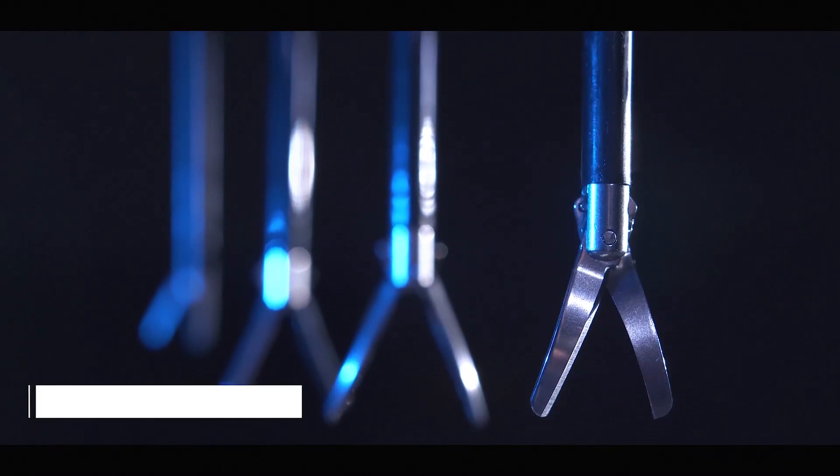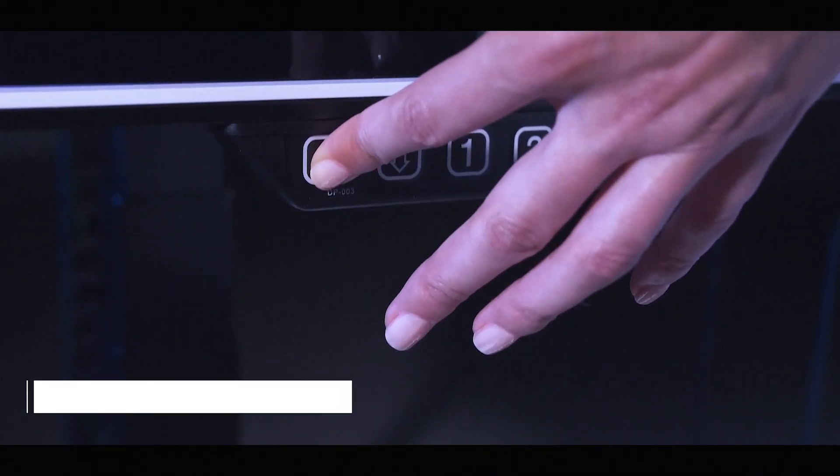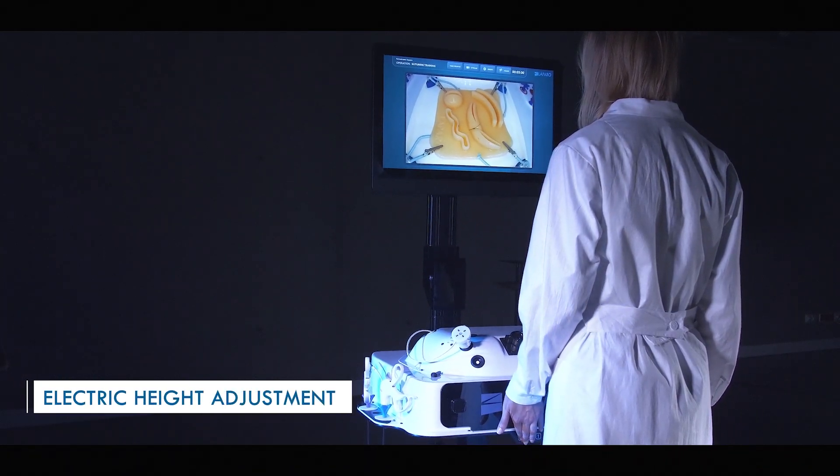The simulator includes a variety of laparoscopic instruments. The device has electric height adjustment, so it can be immediately regulated to the user's height.